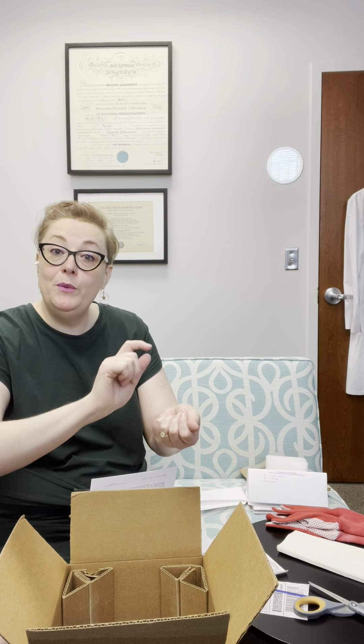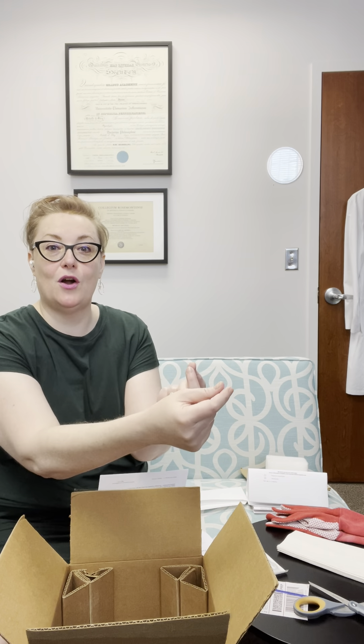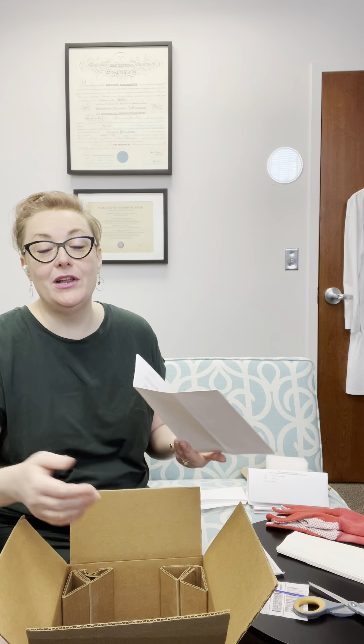The reason we recommend protective eyewear is because when you open the vial you may have a little bit of aspirate that comes out due to pressure that was in the vial. If you don't have protective eyewear, you can just open it far away from your face. You want to have a clean, organized space. I always recommend especially for a home insemination that it's clean and organized, and that you have a steady table or side table or bedside table. Also be in an environment that's comfortable for you so you can relax, because you want your body to be relaxed.